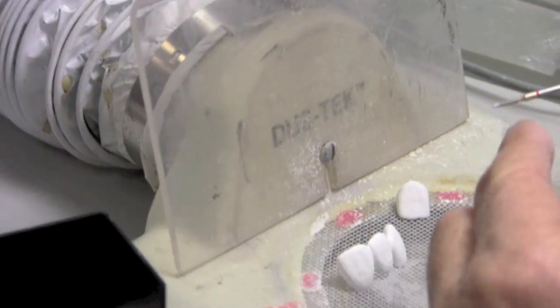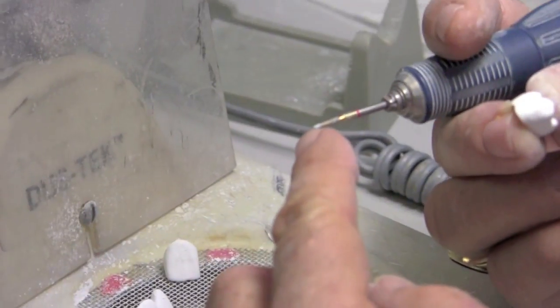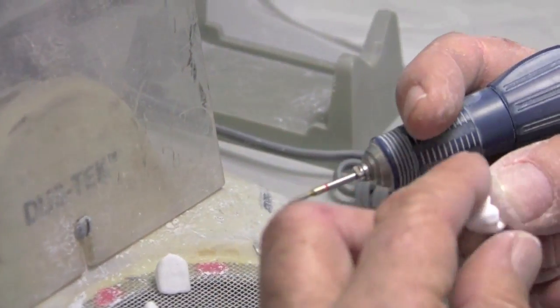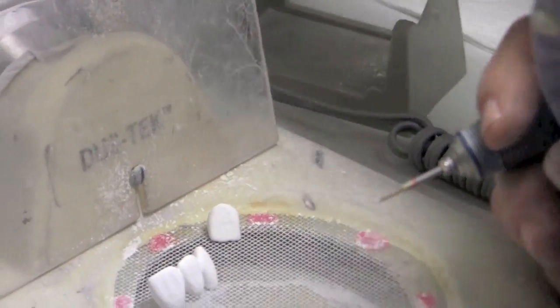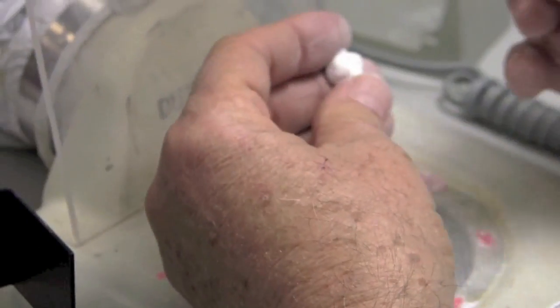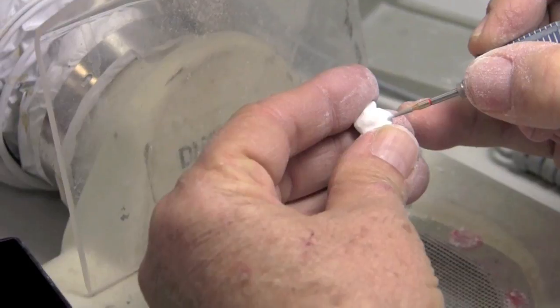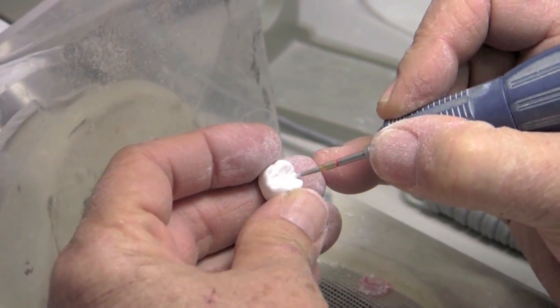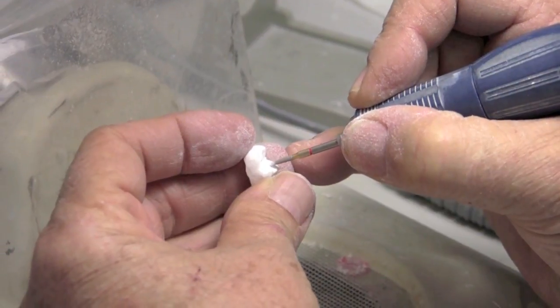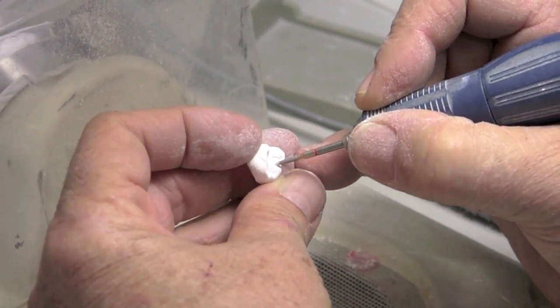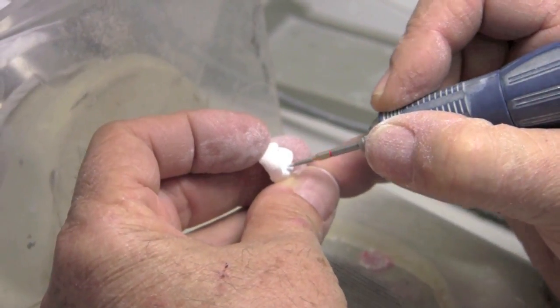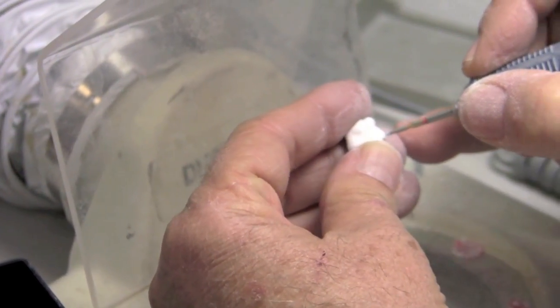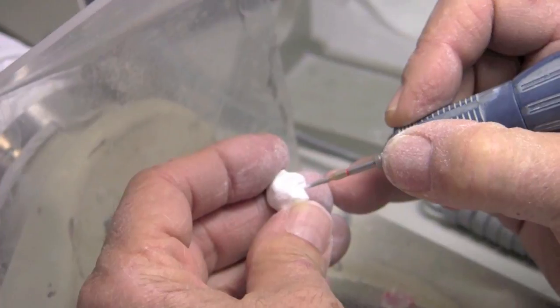None as nice as that carbide, but they have a couple that are a little bigger. The end is sort of like an obelisk, like a chamfer bur that a dentist might use. And I like that just for smoothing into my secondary anatomy. Just a little bit.